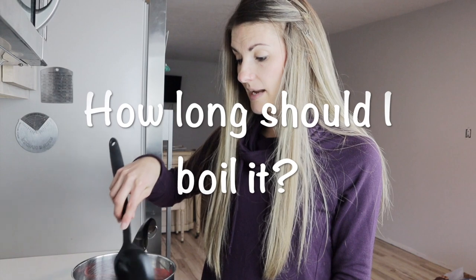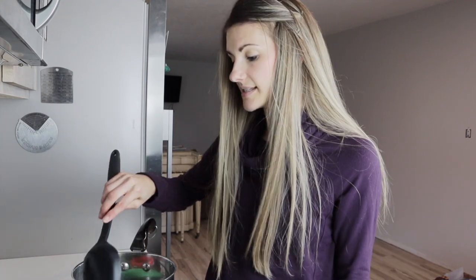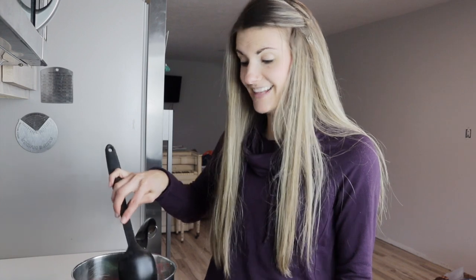The recommended amount of time to clean your menstrual cup is anywhere between three and five minutes. At least, the three different cups that I bought — the Hello Cup, the Pixie Cup, and the Moon Disc — said anywhere from three to five minutes. Boiling actually kills a lot of germs, so there's really no need to do anything more than that. You don't need to then wash them with soap. In fact, if you are going to use soap to clean your menstrual cup or disc, it's really important that you use something very mild — no fragrance, no phthalates or other harsh things that soap companies sometimes put into their products.